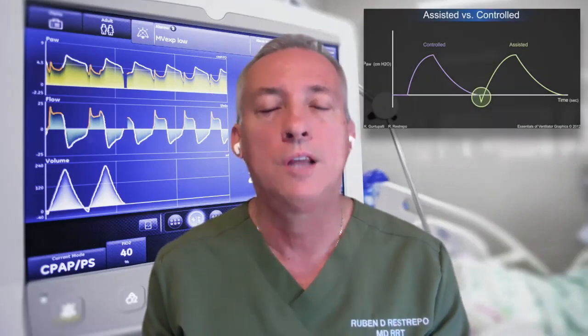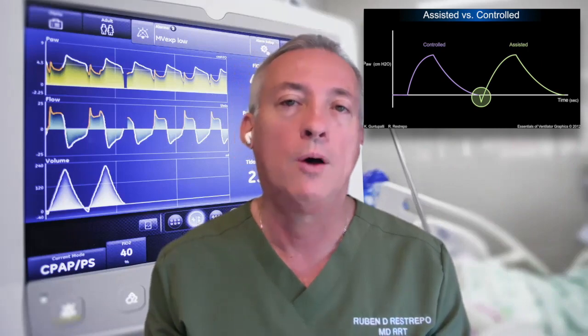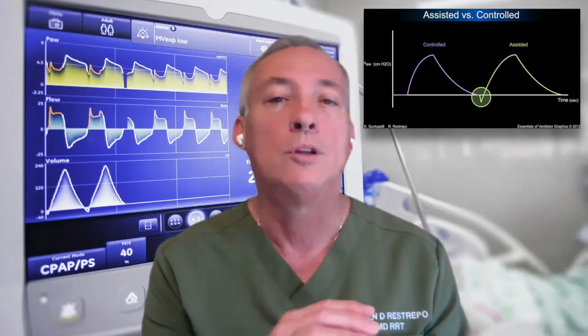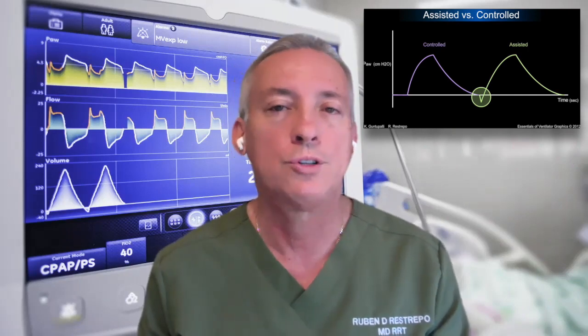Remember that the ventilator will just be telling you assisted or spontaneous. It will change and be trying to fool you into believing that there is a spontaneous breath. But the key is, how do you recognize that this is not a patient-triggered breath? When you're looking at the ventilator waveforms, I would invite you to look at the pressure versus time. You can also look at the flow versus time, but look at the pressure versus time.